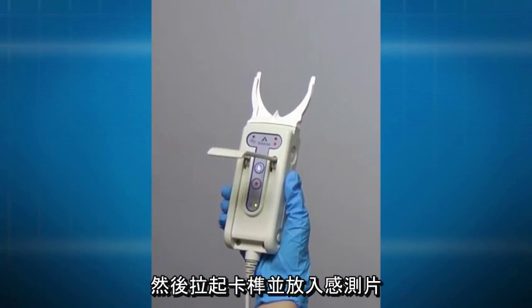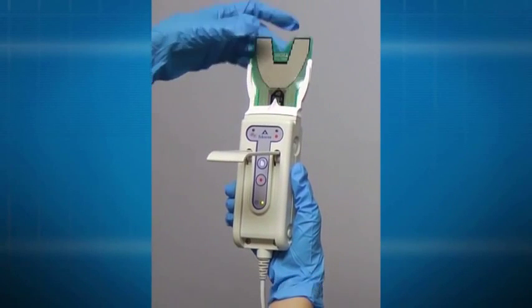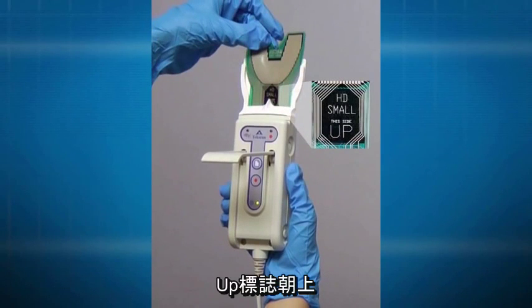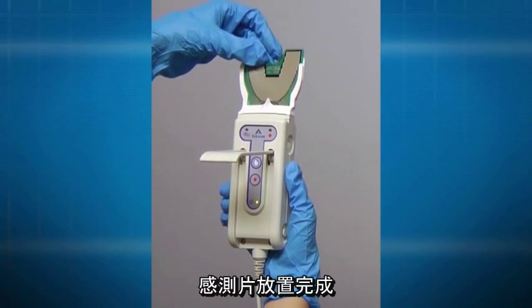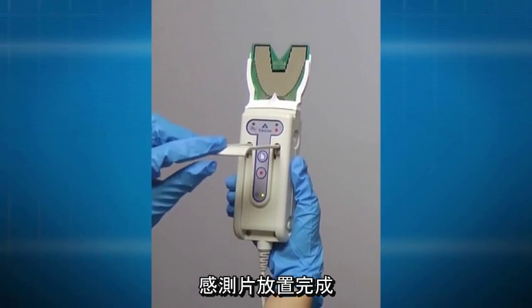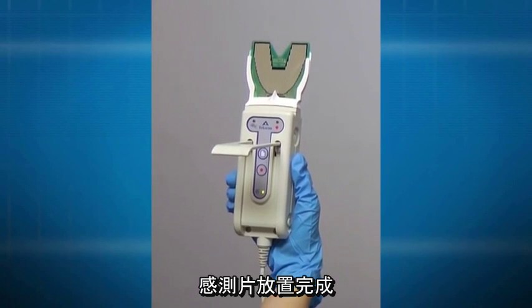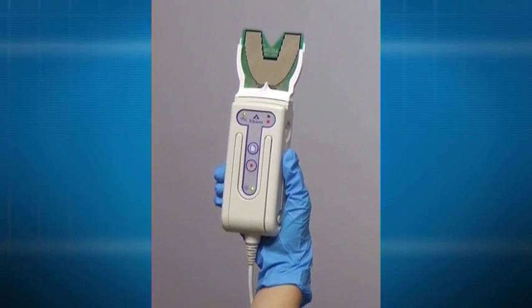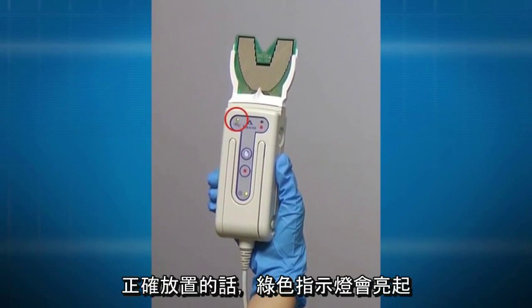Next, lift the latch and insert a sensor, which must be the same size as the support, this side up, through the support so that the outside edges of the sensor slides into the support channels. Close the latch to lock the sensor in place. A green light will indicate that the sensor is properly connected.